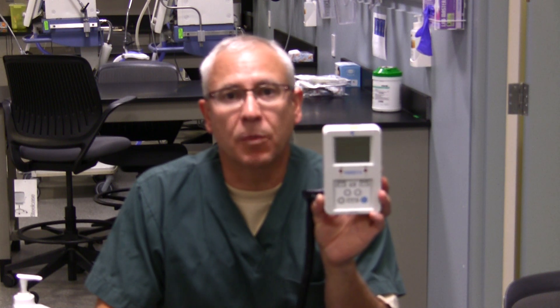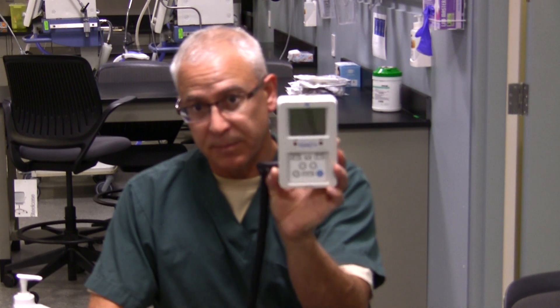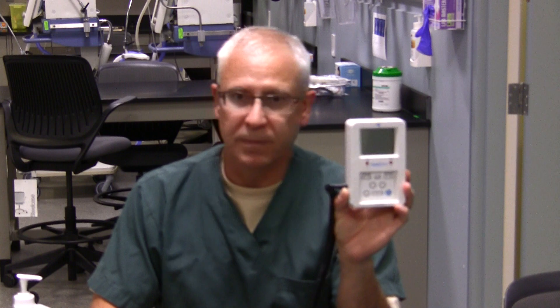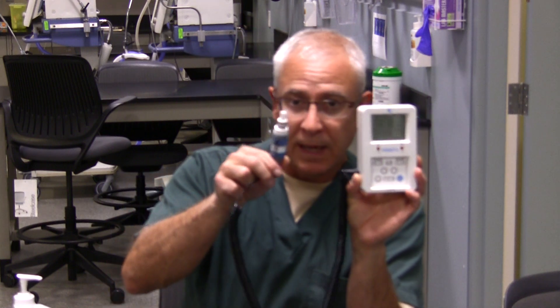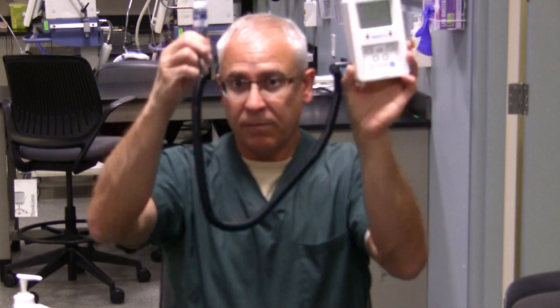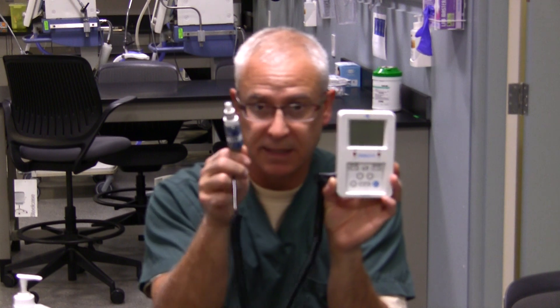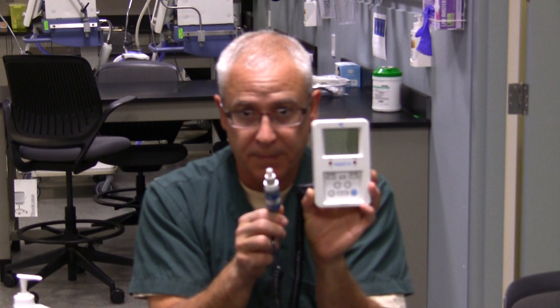The basic components of an oxygen monitor and an oxygen analyzer are the device that displays the oxygen concentration, as well as a sensor or probe that sits inside the gas flow. Sometimes you might have a cord connecting them, but it could also be a singular unit where the sensor and display are combined.